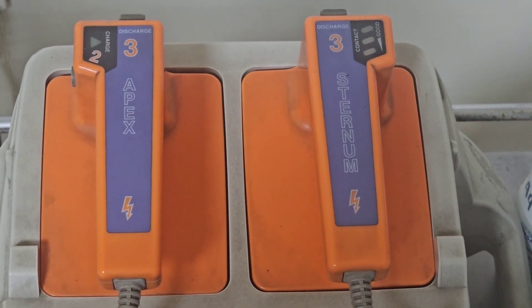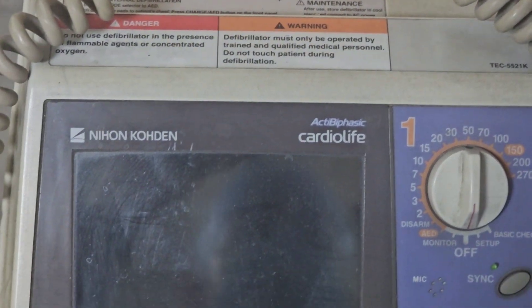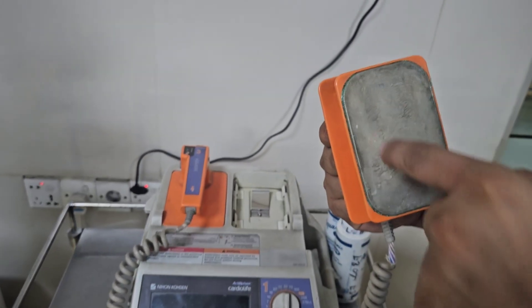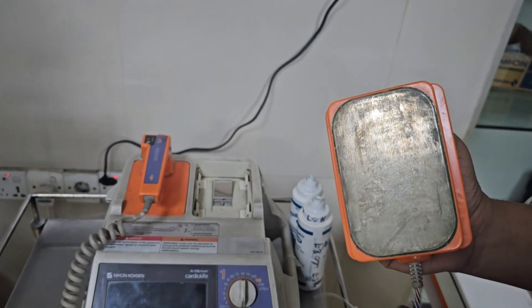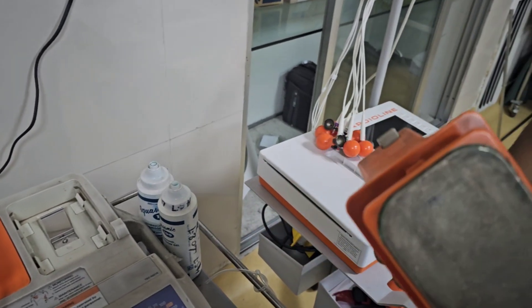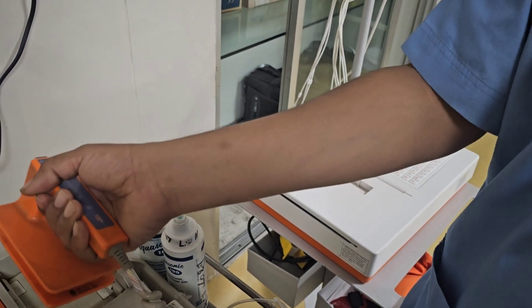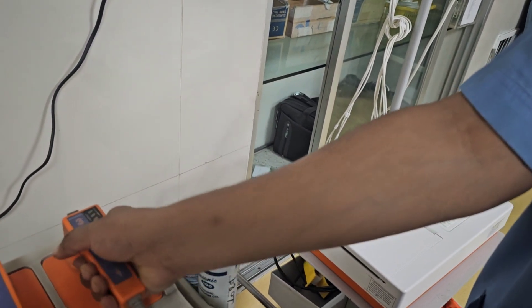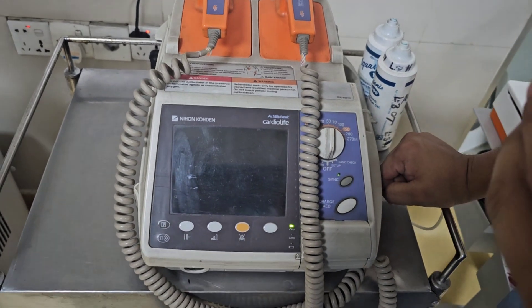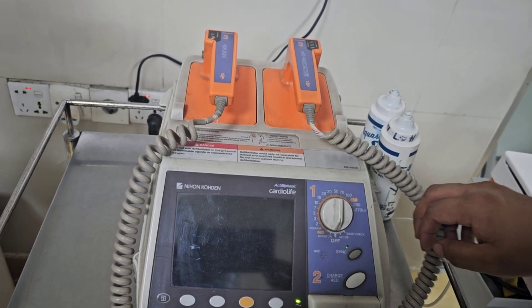When the patient size is small, or in a pediatric patient, we cannot use the standard large paddles because the wide paddle area placed on the chest may cause the two paddles to touch each other. This is an important concern for pediatric patients. In that case, smaller paddles may be needed. So we are going to show you how we set the energy for a cardiac arrest patient.